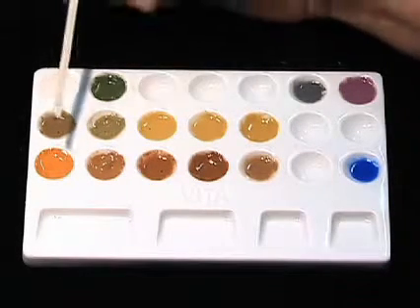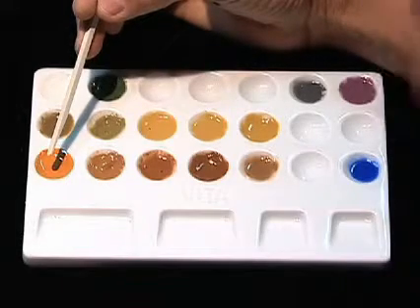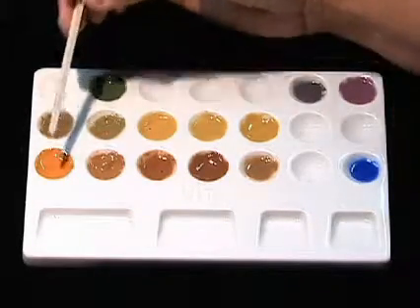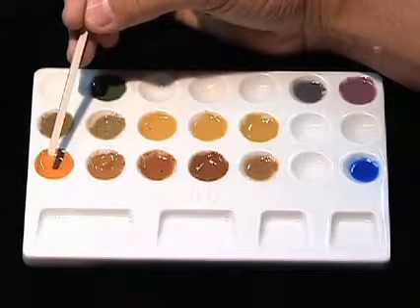Now, I like to organize it with a very common color, or what I call a good starting point. If you look at this bottom left hand corner, this is a color called ochre. Ochre is a kind of yellow orange-ish color. And while natural teeth aren't necessarily this color, I usually start with this color and then I modify.